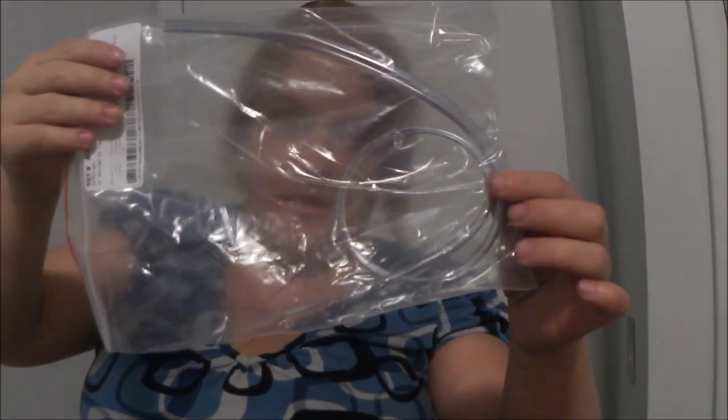This is what they look like in the bag. I'm sure that plenty of you out there have had issues with being out somewhere and maybe the shape of the toilet doesn't work with your wheelchair, and it's hard enough to get close enough to the toilet with your regular catheter that you have to make sure you don't have a mess. So I'm going to show you how this extender works.